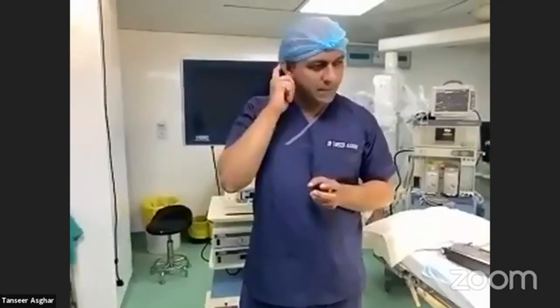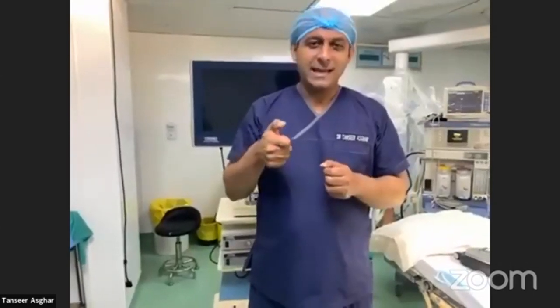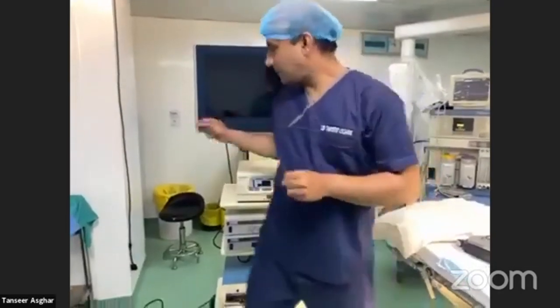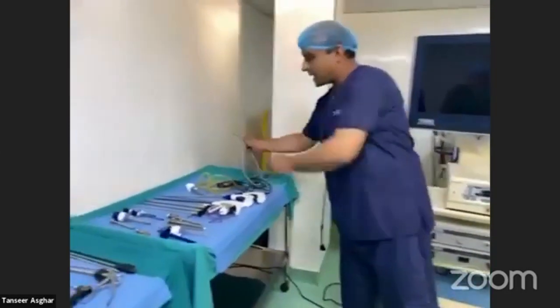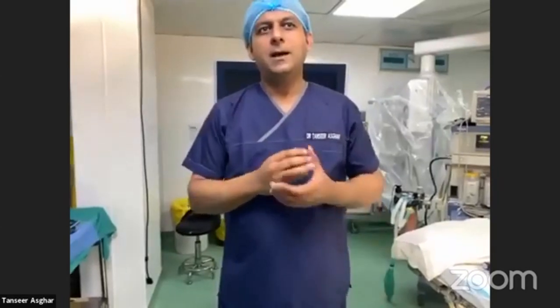Another incident at a big hospital during laparoscopic cholecystectomy — the light source stopped working. I thought not to open the patient, so I used my iPhone's light placed on the light source port, and it actually worked with the camera. I completed the surgery in another five to seven minutes using that light. Necessity is the mother of all inventions. But the right approach is to always have two insufflators, two monitors, multiple telescopes, and complete backup equipment in every setup where you perform laparoscopy. Our responsibility is to be safe for the patient.